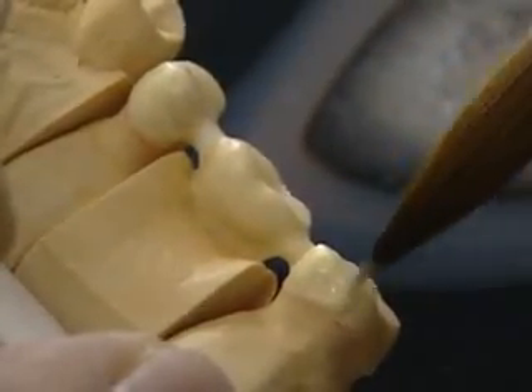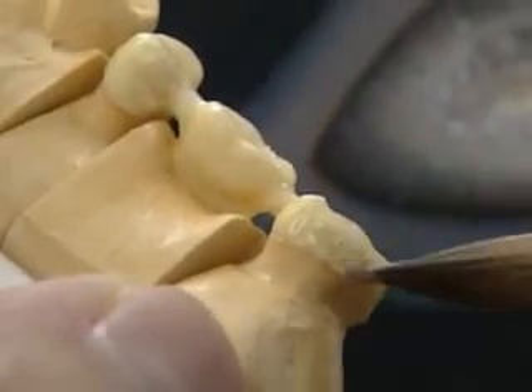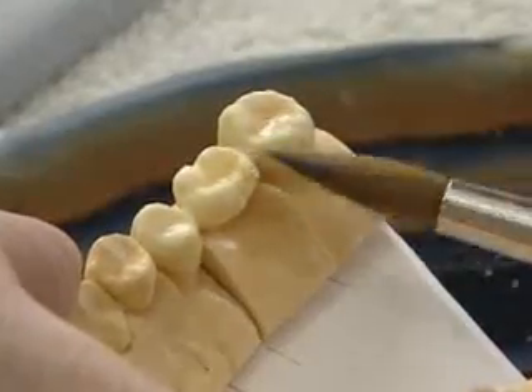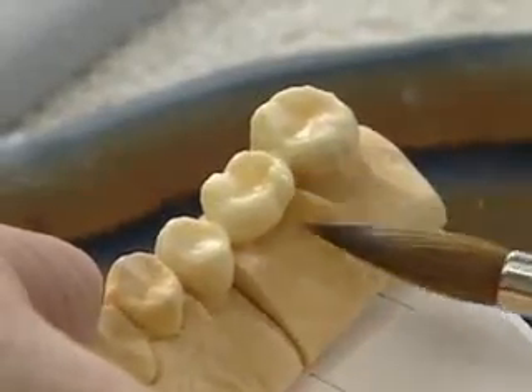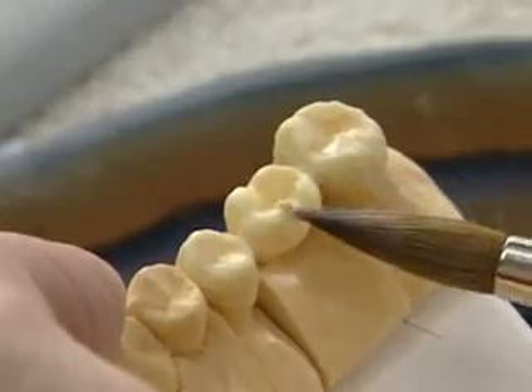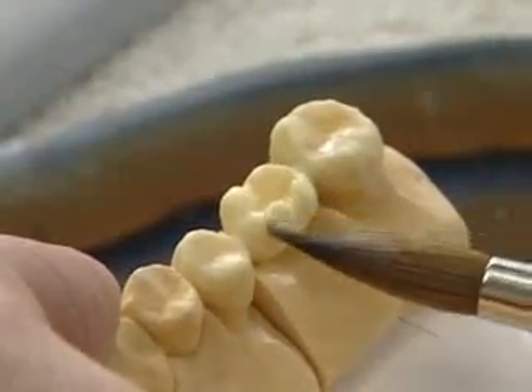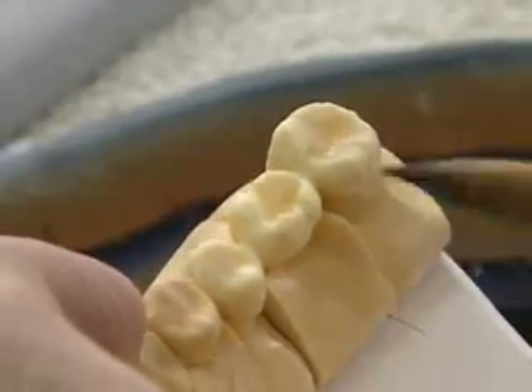Warm chroma, which is a fluorescent inner core material, can also be used in the palatal region and for the interior occlusal structure. This interior structure, composed of a material of high colour intensity, supports the cusp areas and results in a natural posterior restoration appearance.